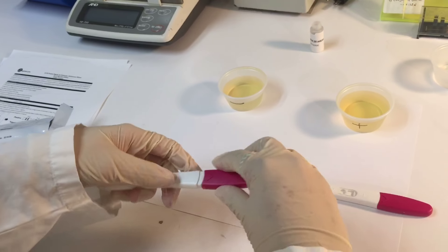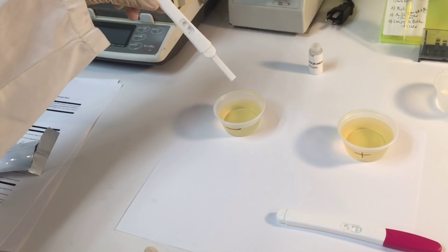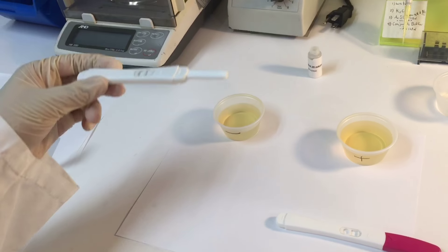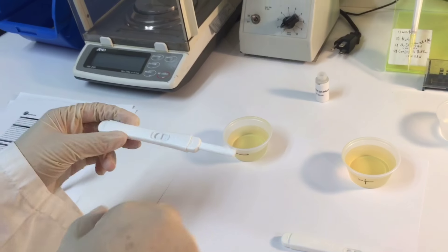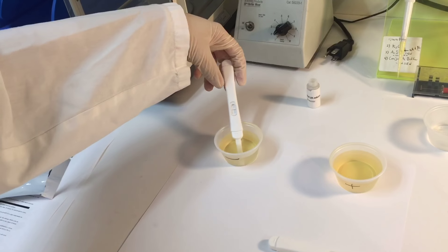You open it and here is where you have to put the urine. You can introduce it in a container like we're gonna do, or you can urinate directly on it. So we're gonna introduce it for about 15 seconds.